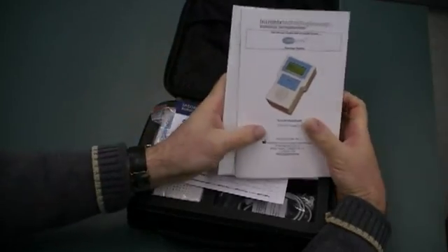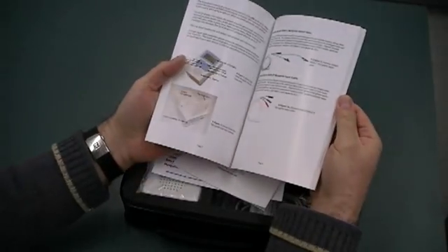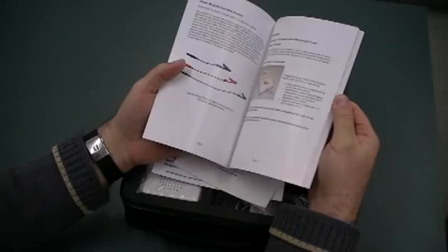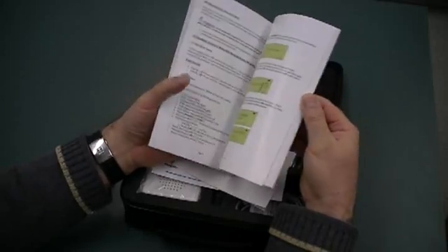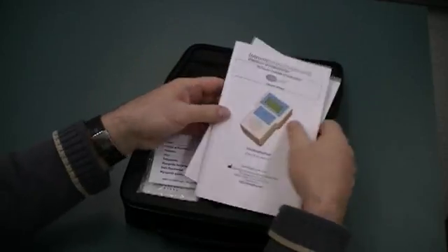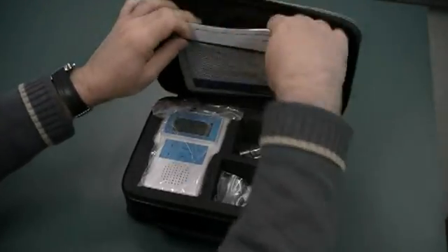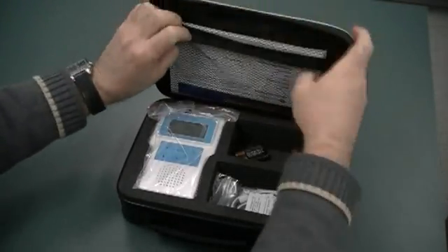Okay, so these are very comprehensive manuals. Please have a look at them. They've got almost everything you need in here. Okay, so let's just put this stuff back in. Very handy, always where you need it. Very good.